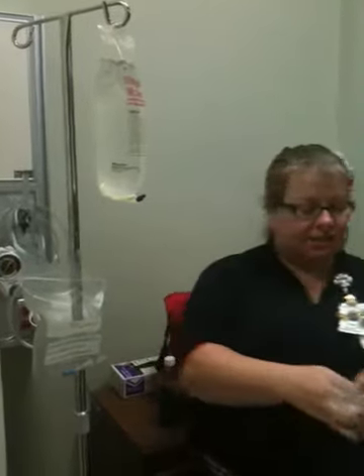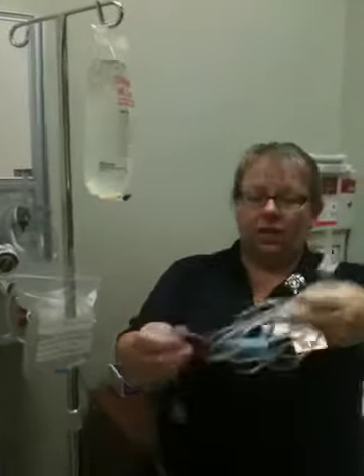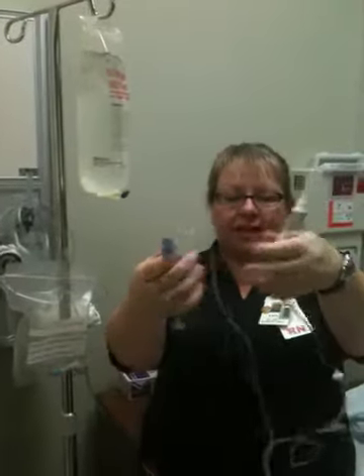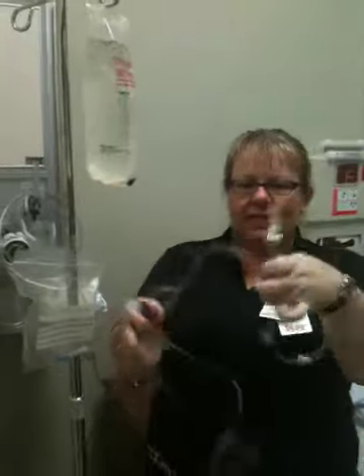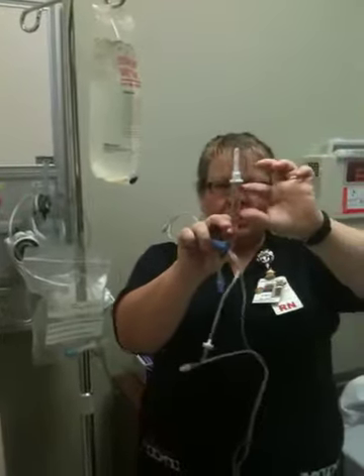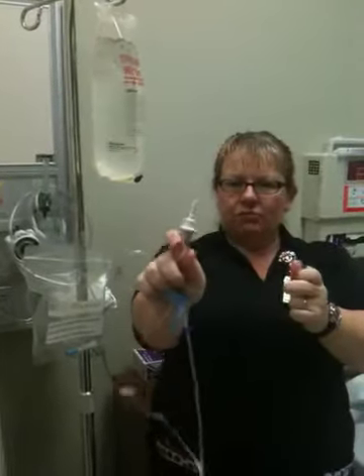Your primary extension set is going to be a longer set. It should have numerous ports on it. You'll have a roller clamp. In facilities, they'll look a little bit different because they'll be designed to handle the pumps. This drip chamber right here is very important. You're going to keep everything sterile. This is your spike.